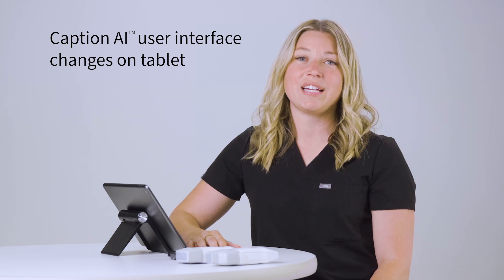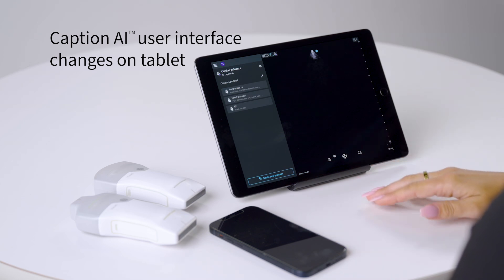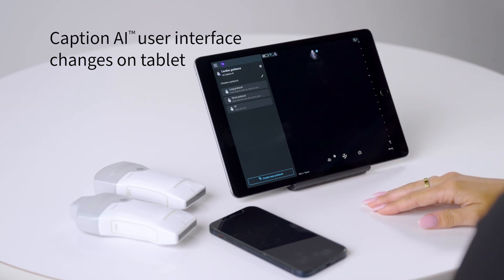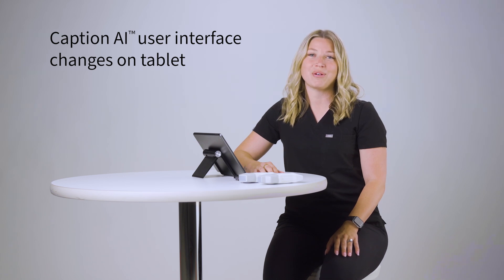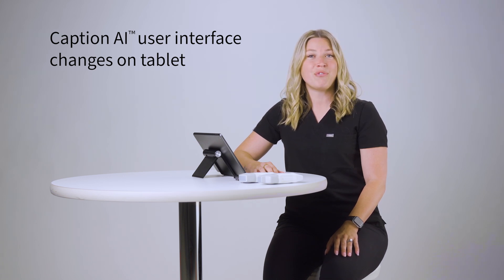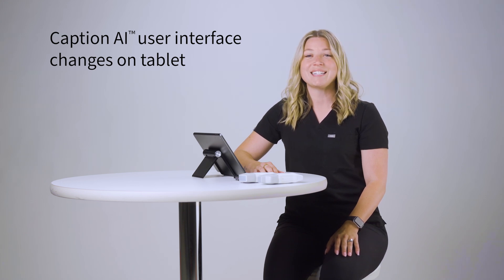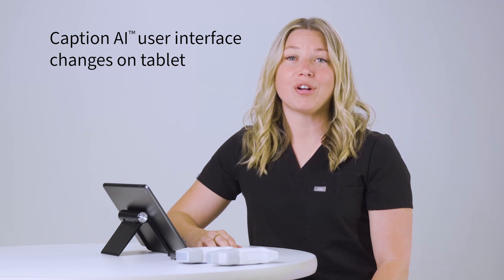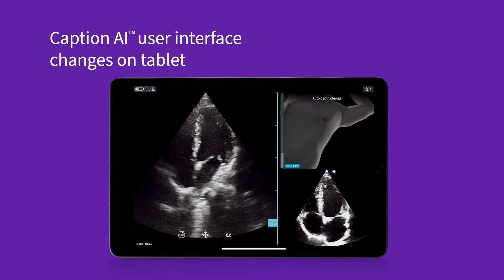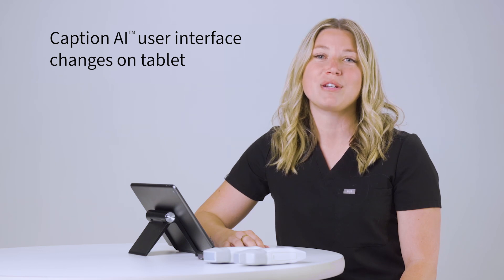A few other minor changes include the menu navigation. Now, simply swipe from left to right on the left edge of your screen to see the protocol views or to choose a different protocol. We hope you have created some custom protocols. There are standard indication-based default protocols, or you can create an entirely new protocol. The last change brings a welcome automation in the auto depth feature — the software will now automatically adjust the depth. This can be disabled if you wish, but we hope you enjoy the additional automation.